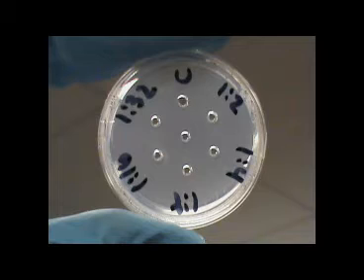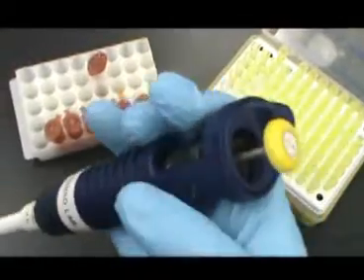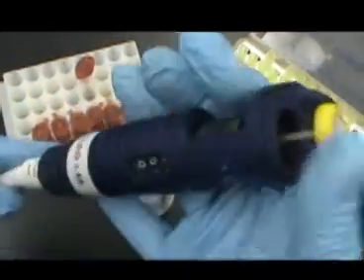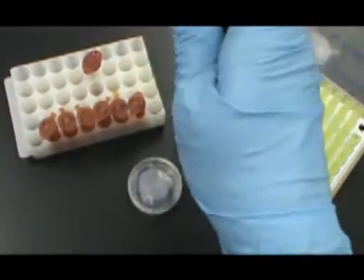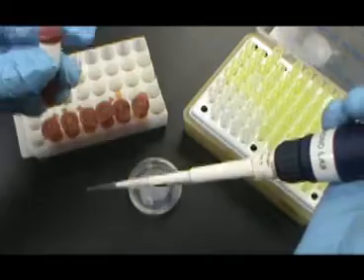The patient sample has been divided into a series of dilutions. One well will be used for the inoculation of each dilution. You will be using the 2 to 20 microliter micropipette for this exercise.